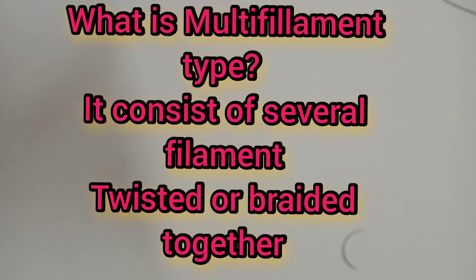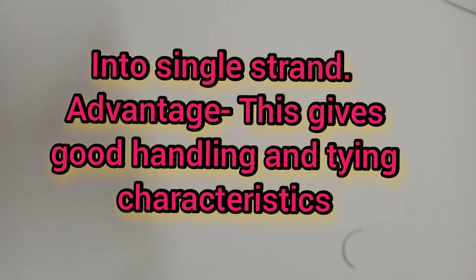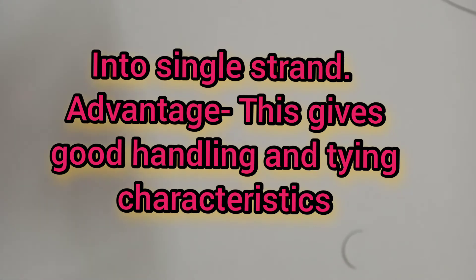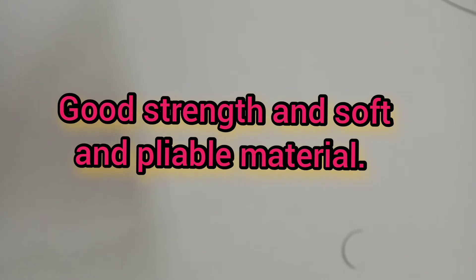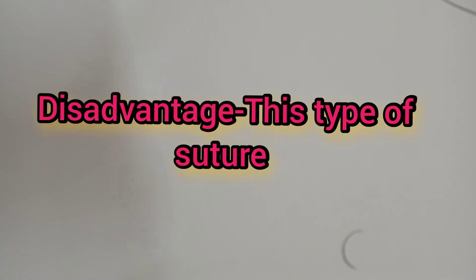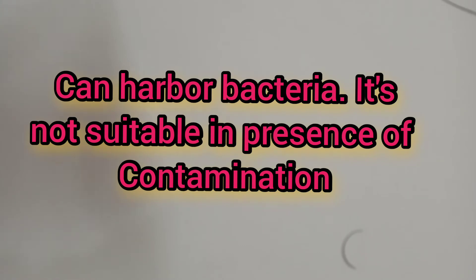What is the multifilament type? It consists of several filaments twisted or braided together into a single strand. The advantage is good handling and tying characteristics, good strength, and it is soft and pliable. The disadvantage is that this type of suture can harbor bacteria, so it is not suitable in the presence of contamination and infection.